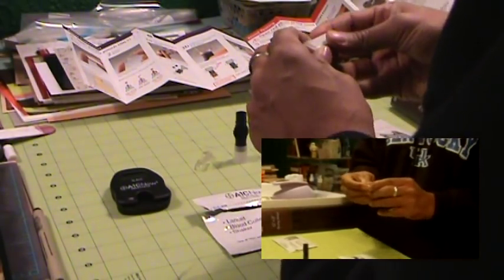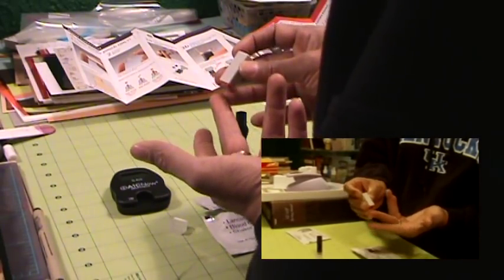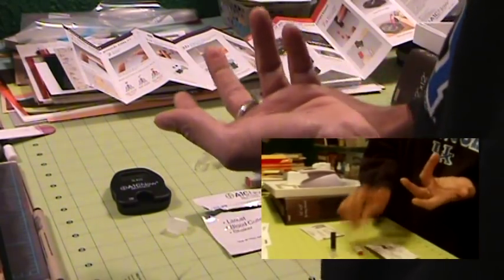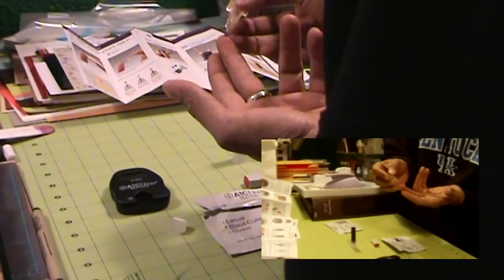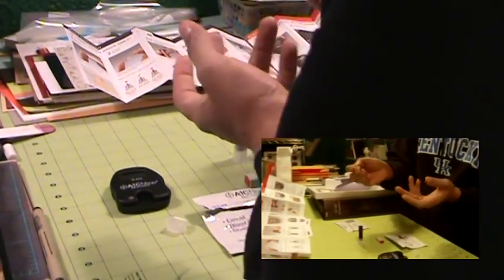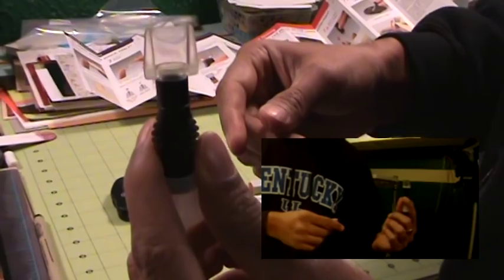Step one. These are one use only. You could just use a regular diabetic lancet, but if you're just figuring out if you have diabetes yet or not, this does draw a lot more blood than you would need for a modern diabetic meter. And then you stick it in here, closing it tightly so there's no space around the edges.